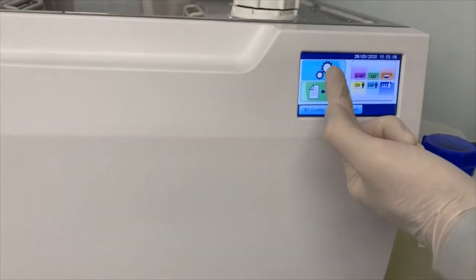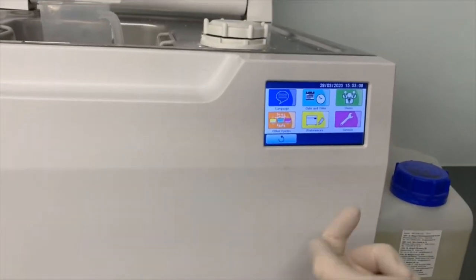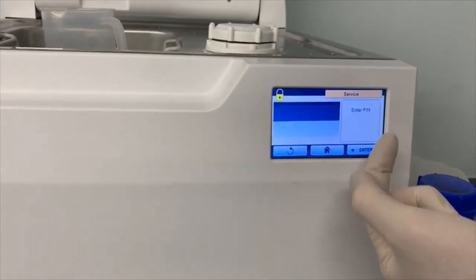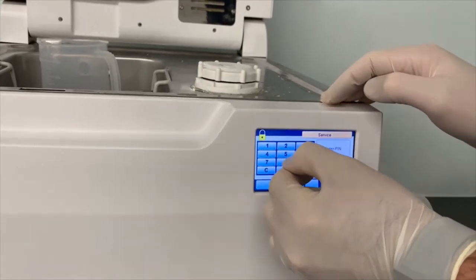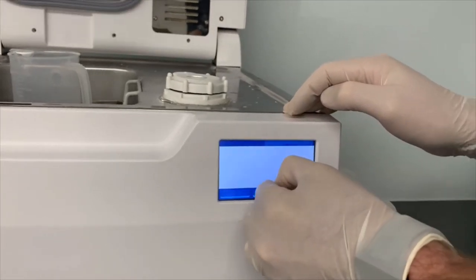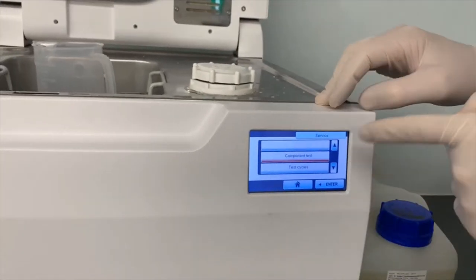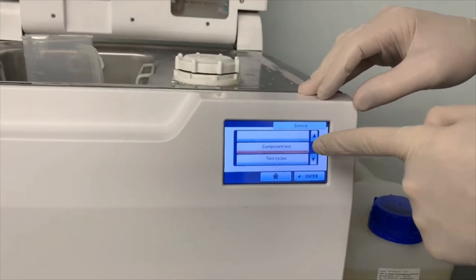So if you come into the settings icon and then service, at this point if you can call MoCom Australia for the passcode, we'll provide you that passcode and get you into the service area so that you can run component test.